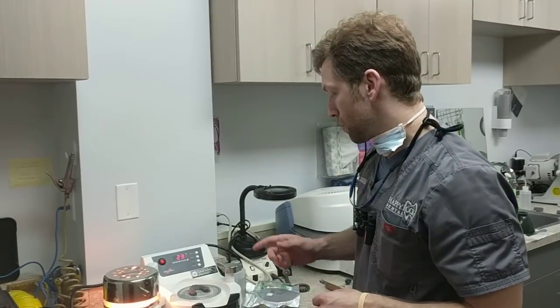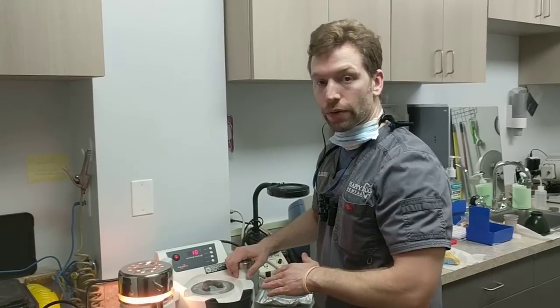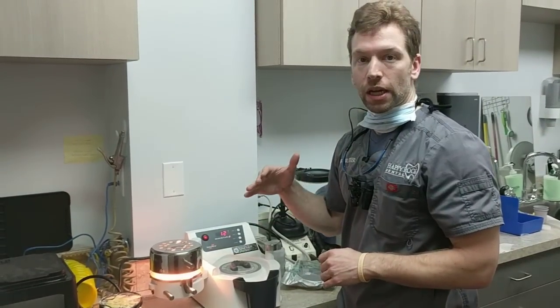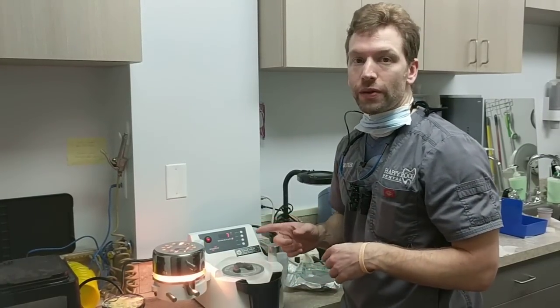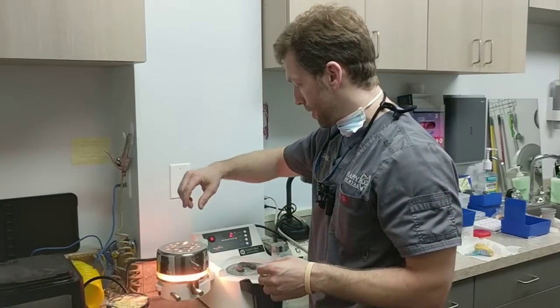In just a moment we're going to remove the heating element, slam this shut, and lock it down right here, and you'll hear the pressure hit. The timer then kicks on again, which will be kind of the cooling time — how much time we need to leave it. At that point we'll probably wrap up the video and come back to do another video of the actual processing of the material. It gives you a nice loud indicator.